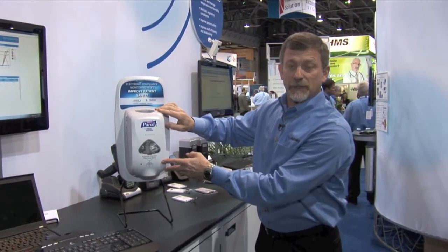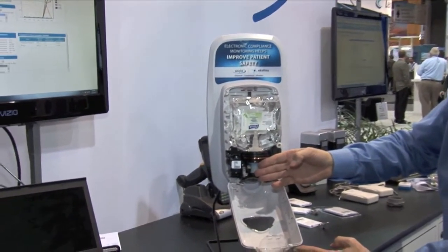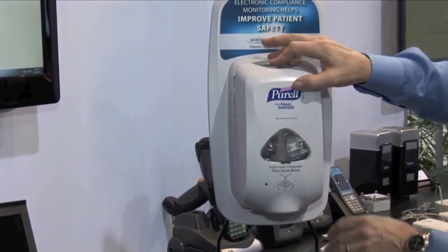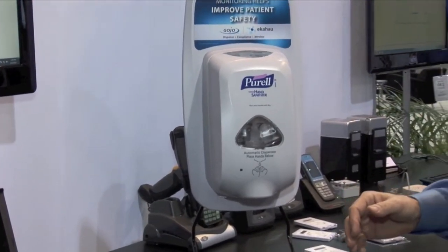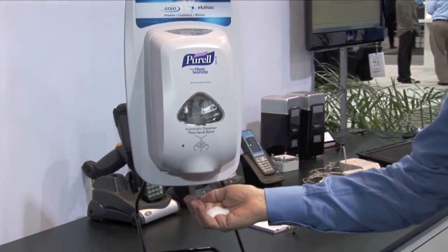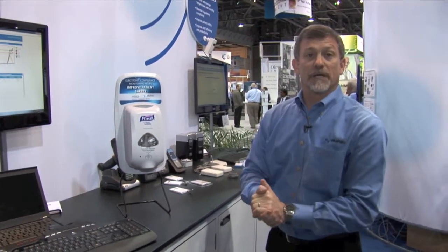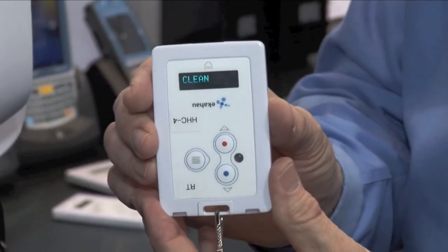Ekahau has teamed up with Gojo Industries, the maker of Purell Sanitizer. With the application we're using our T301 badge tags and their dispenser. For demonstration purposes I'm going to take my tag off. Within the Gojo SmartLink dispenser we've installed an IR fob within the actual unit. When the healthcare worker comes up to the dispenser and dispenses the sanitizer, the IR fob receives an electrical pulse which then sends the infrared signal to the T301 personal badge tag.